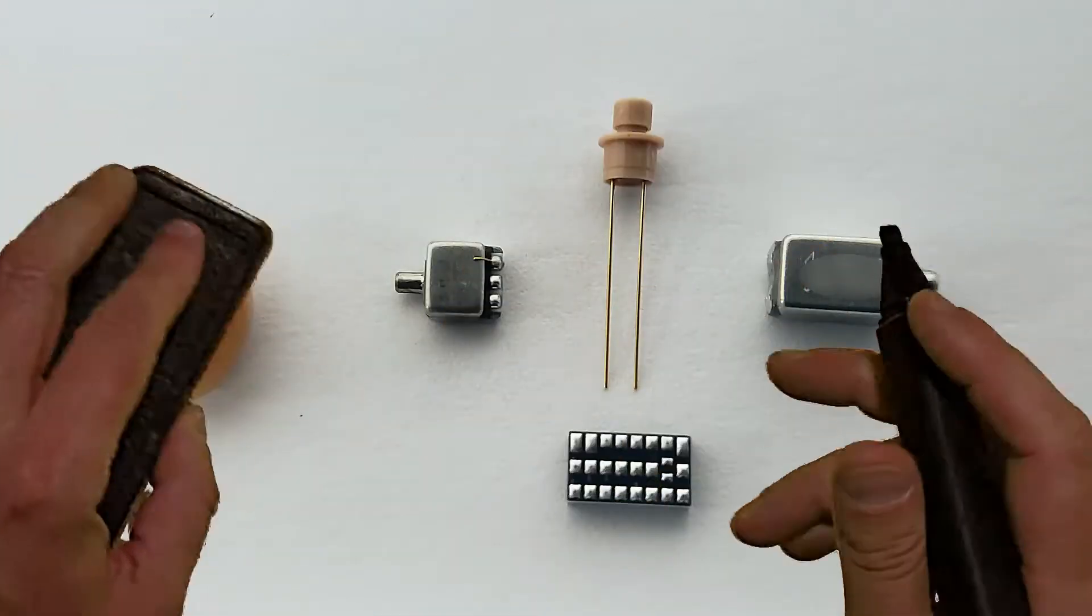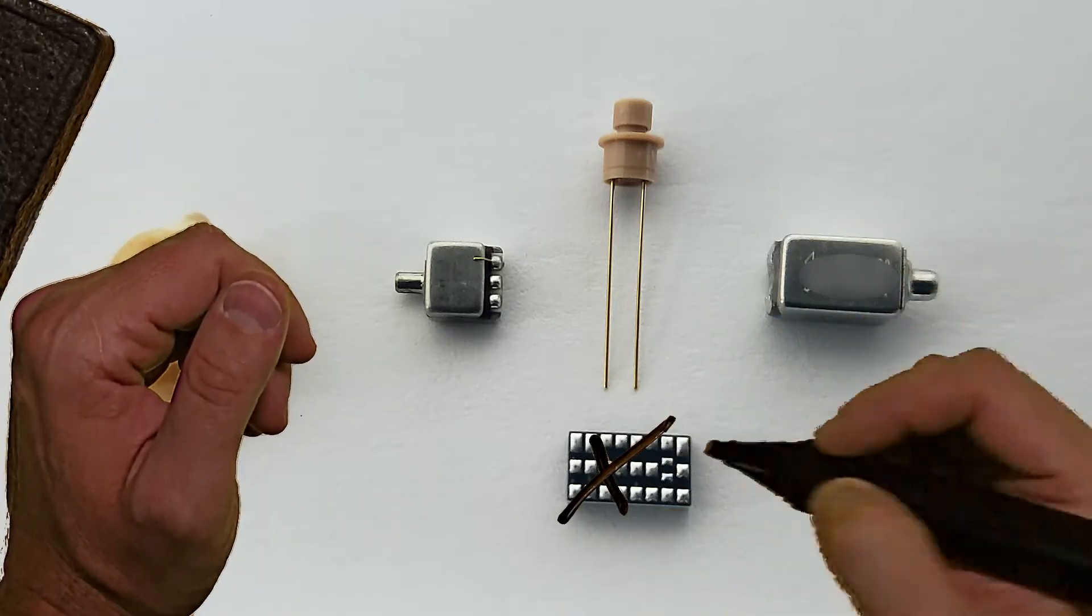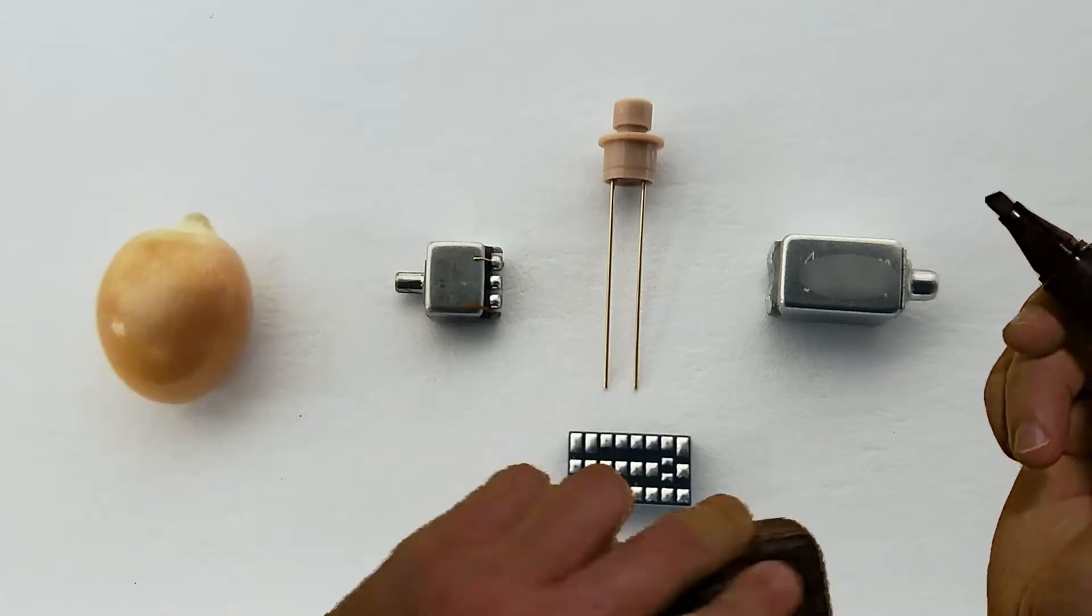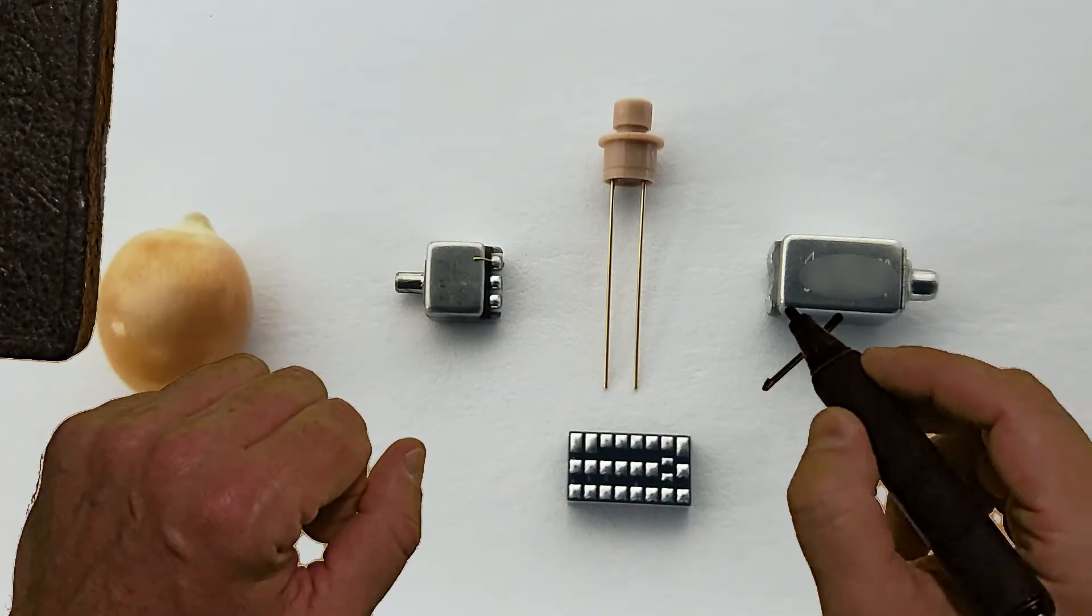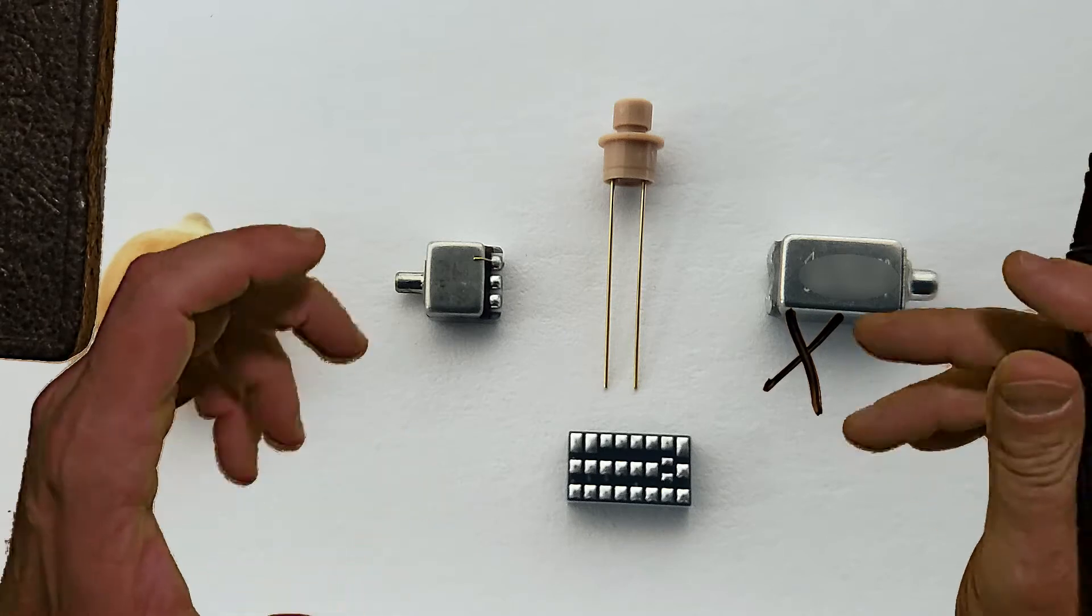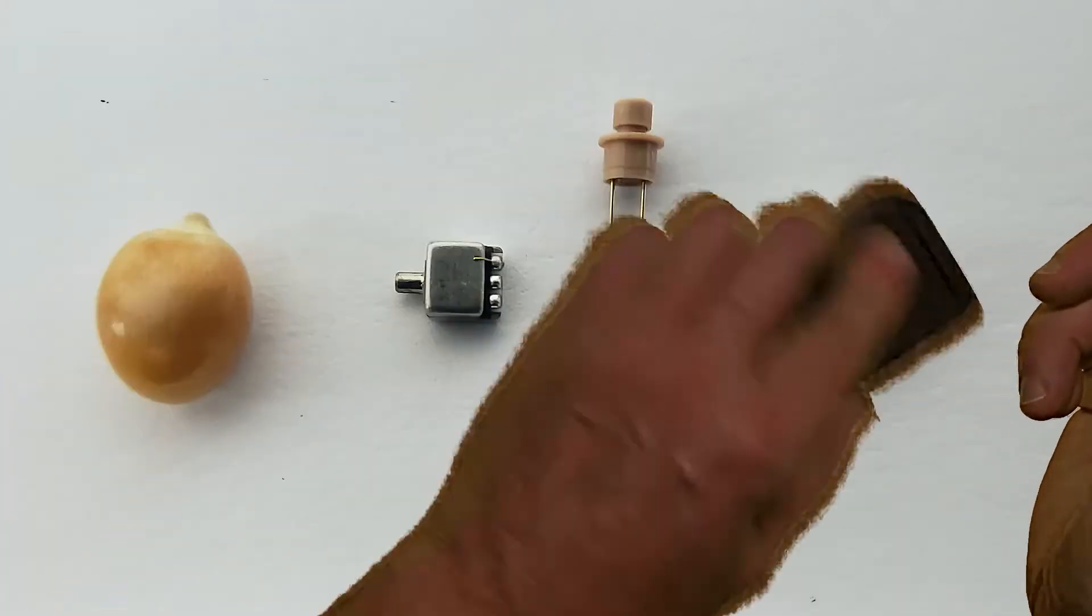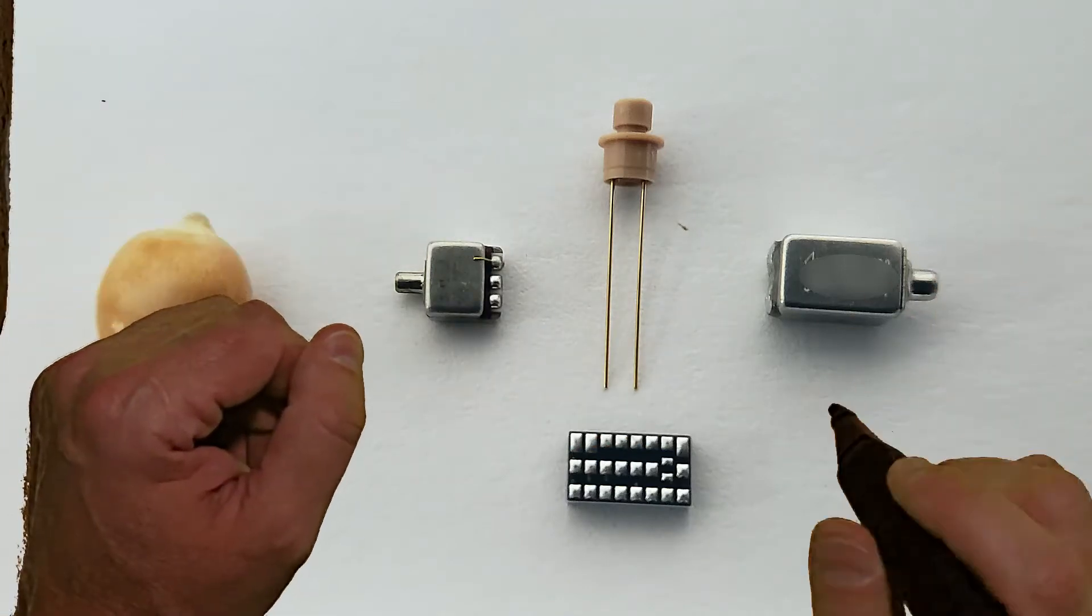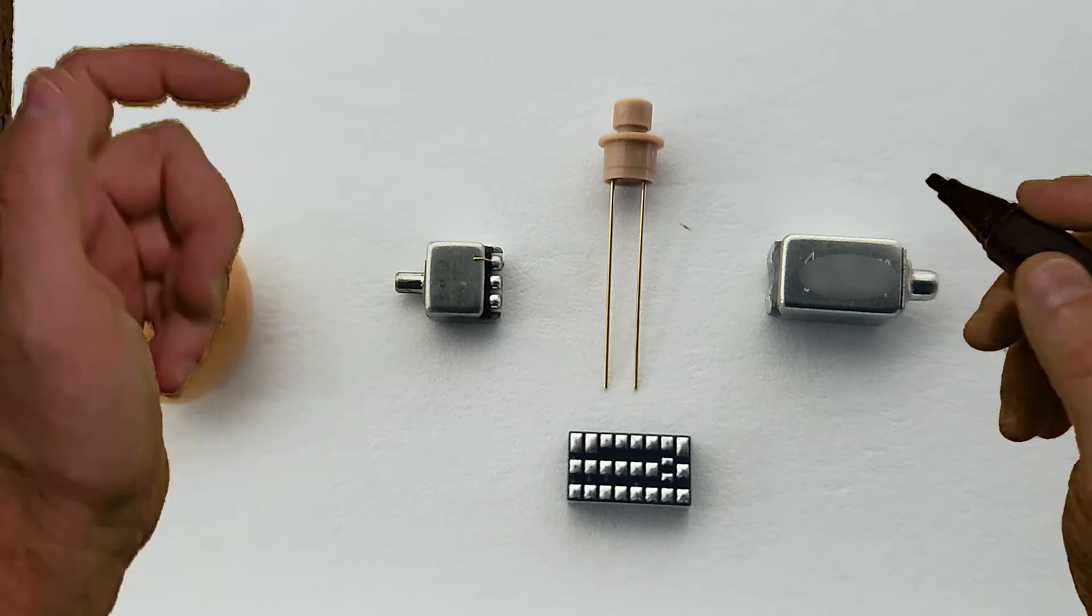Now, let's say I can't hear anything out of the device. Of course, you might have a bad microchip. But most probably, it's going to be the receiver due to earwax, because earwax is the number one killer of hearing aids. If that happens, be sure to contact your manufacturer to get that receiver professionally cleaned, adjusted, or replaced.